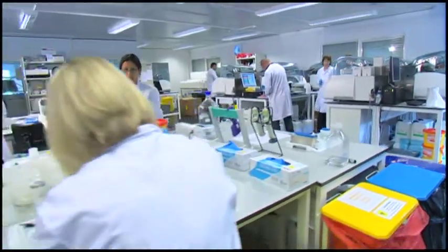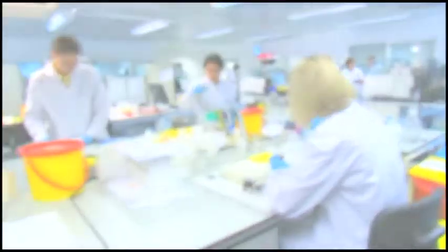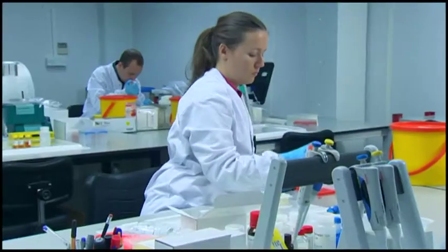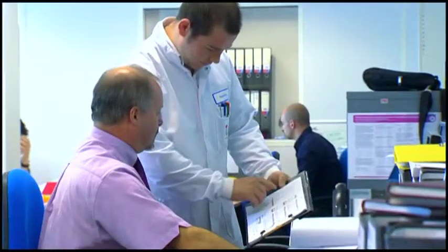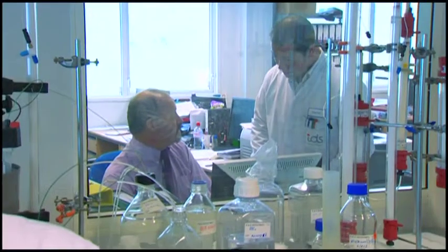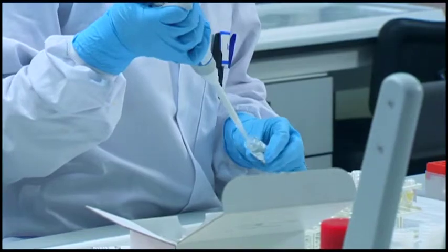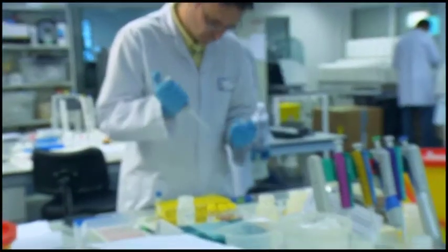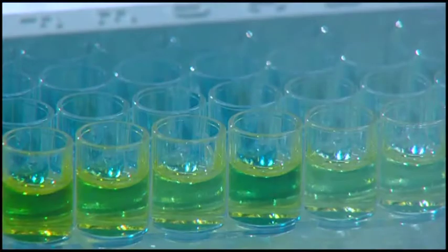With research uncovering new clinical applications for specialty analytes, the workload of laboratories is constantly increasing. Combined with increased pressure for shorter turnaround times and the need to maintain clinical quality, automated solutions are required for the modern laboratory's specialty immunoassay needs.